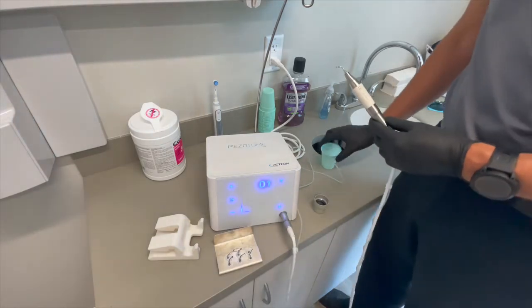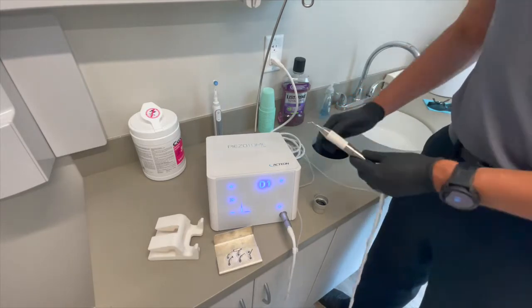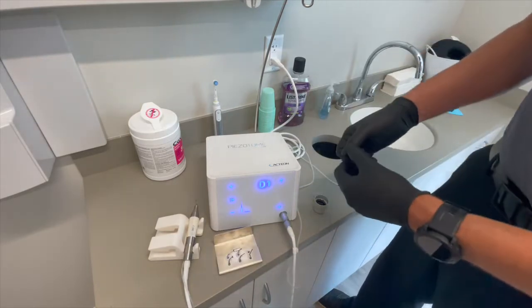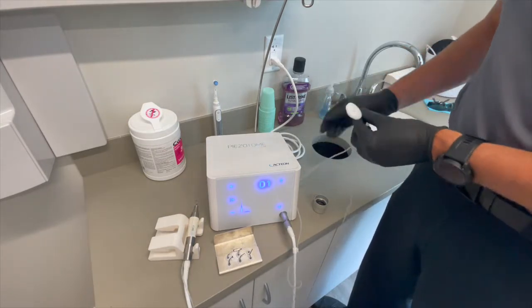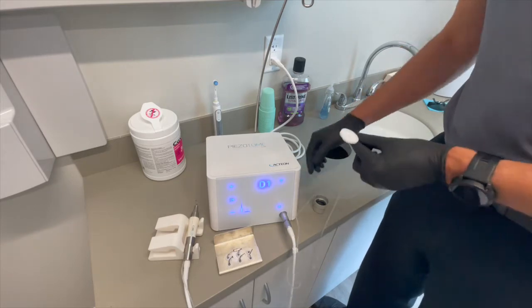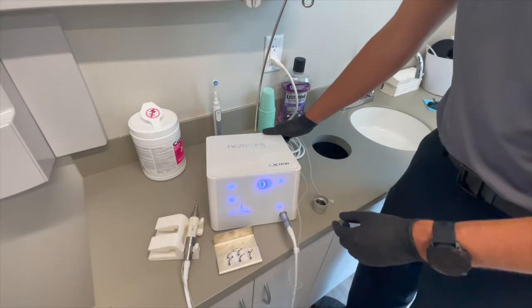At this point the cup is done and we can go ahead and disassemble and bring items to your SteriCenter. Pull the tubing out — since this is the autoclavable version, we're going to save that. Then go ahead and turn the machine off.